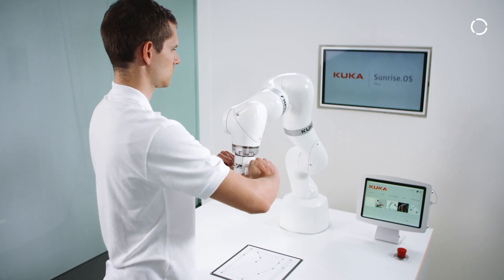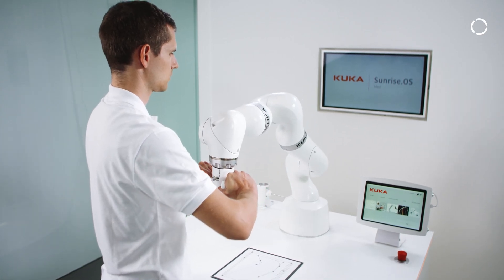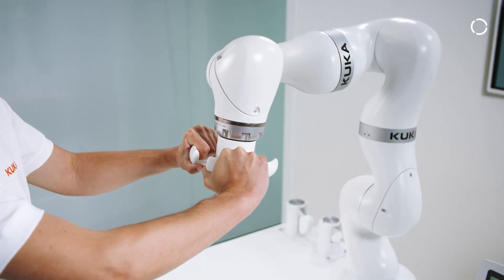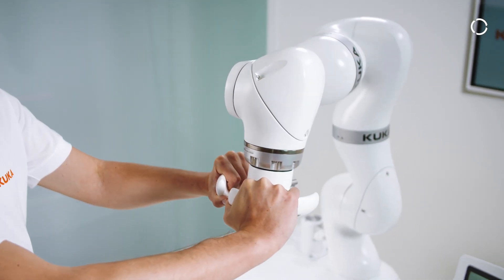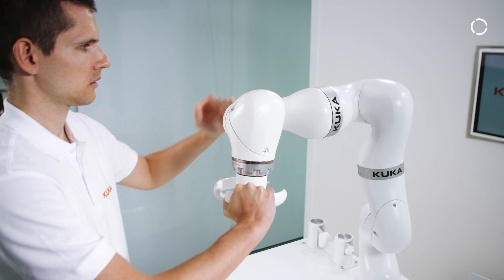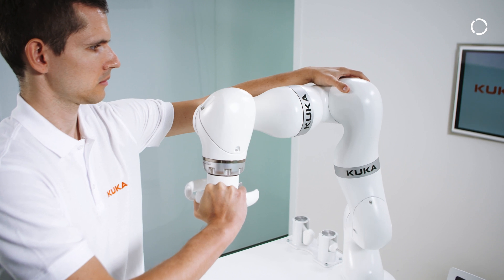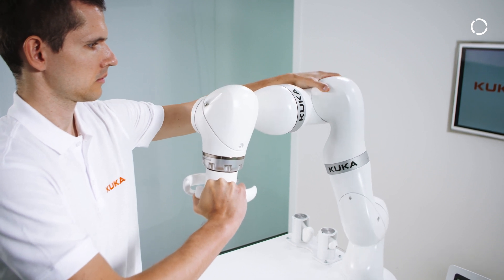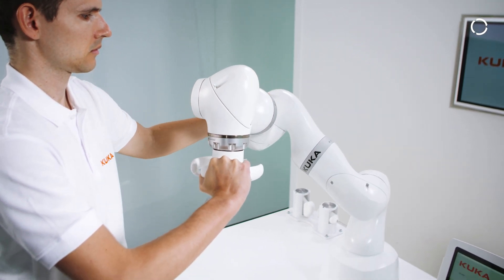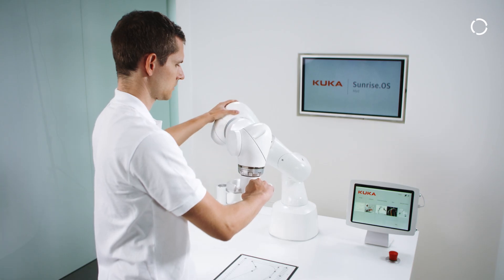The KUKA standard hand guiding is available for every LBR Med and can be either initiated conventionally on the robot or programmatically integrated into a more complex robot application. It allows the user to manually move the robot within its workspace as well as to perform teaching of positions and motions.